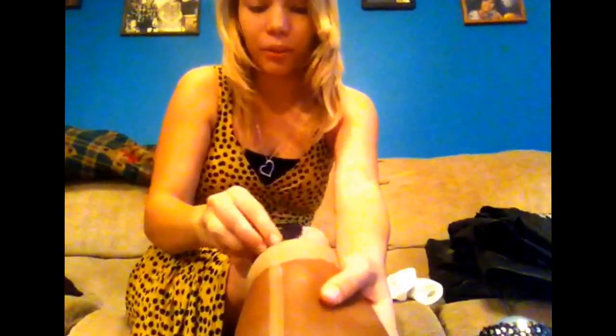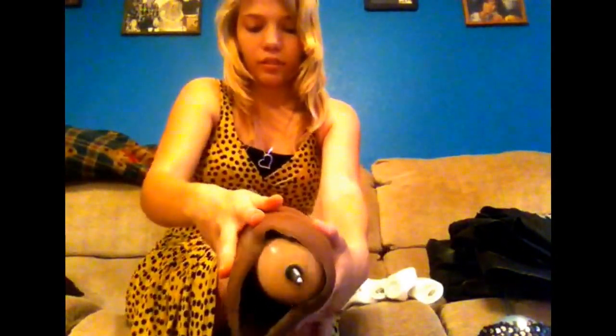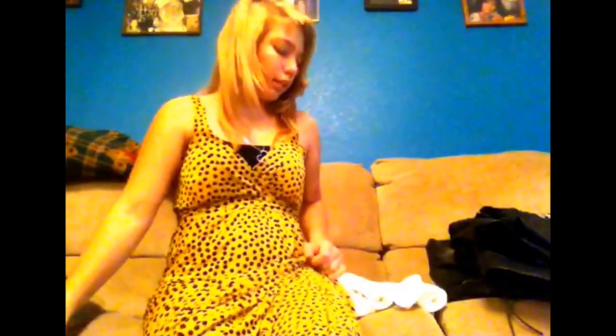There we go — wanting to put it in there again. My doctor put a dot on my liner because he did a little sewing down inside my leg so it wouldn't rub that spot, but it did no good.